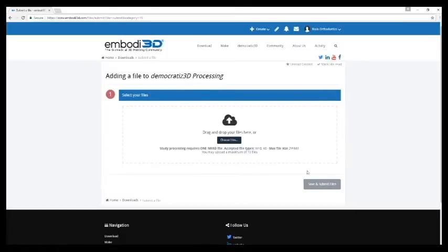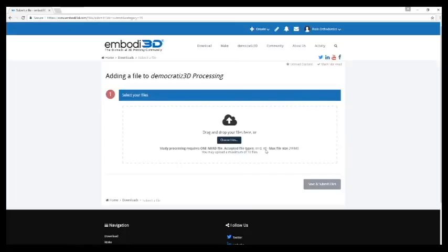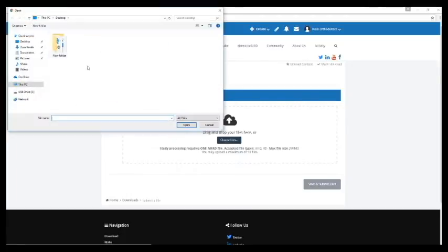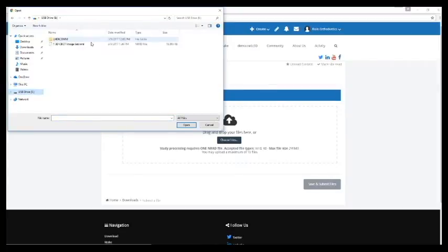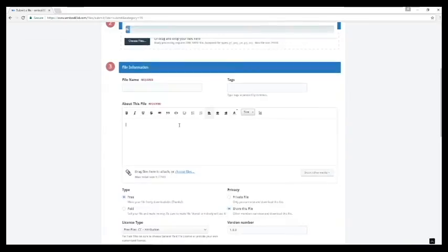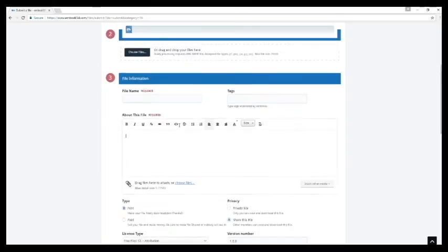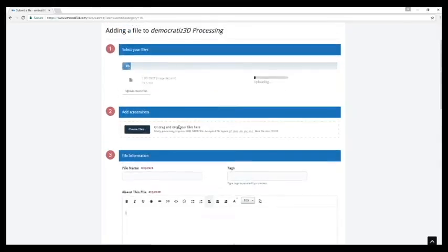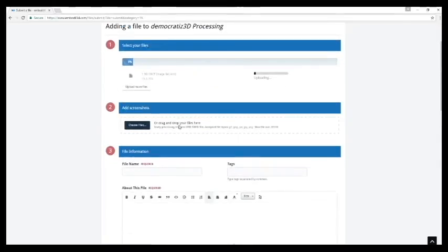And here you can add your file, and as you can see it only processes NRRD files or STL files. So that's why we had to use Slicer before to convert the DICOM data. So here I will choose my NRRD file and that will begin to upload.